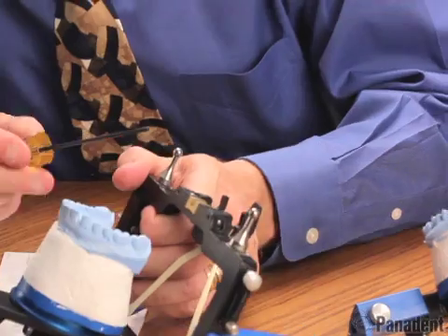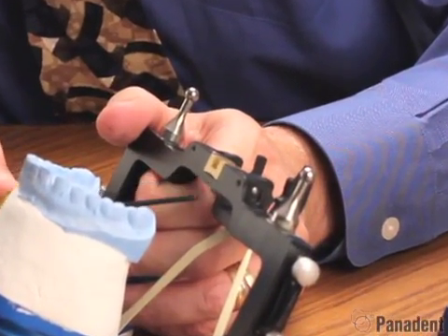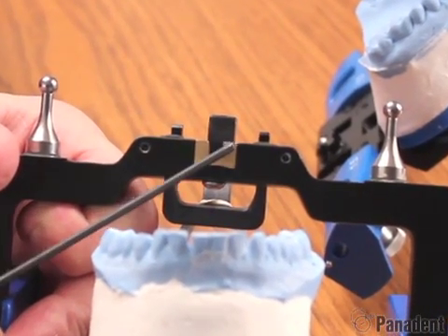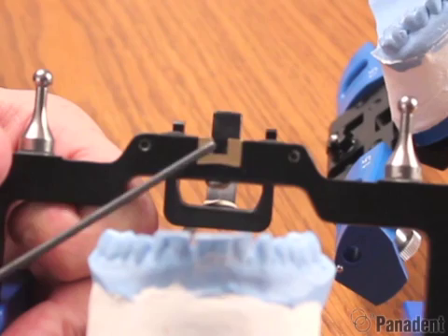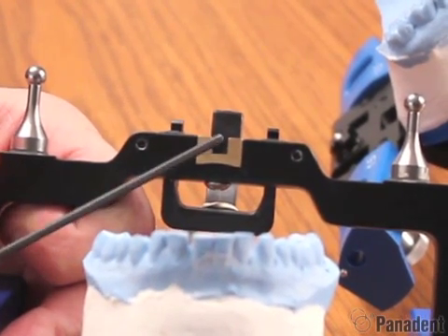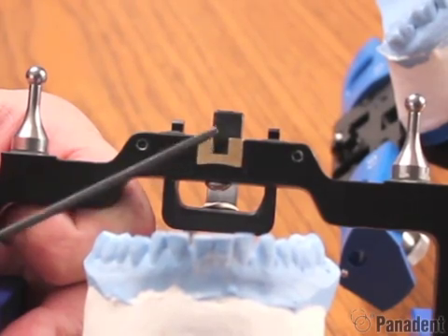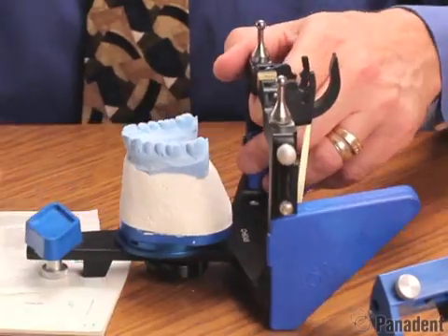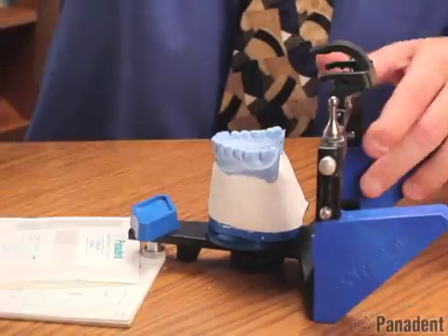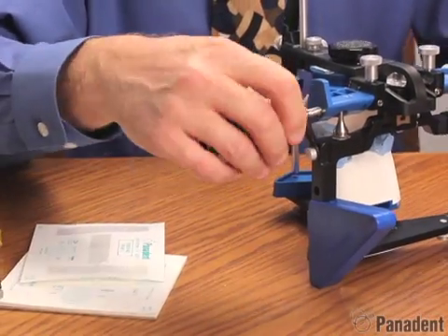If you notice, there's also a little half-moon effect on the bottom of the centric channel, which means if you tighten the screw down too tight it will pull the center down and actually squeeze the sides inward — so this centric channel is adjustable. If you over-tighten the button screw the centric pin will not slide through the channel well, so you may need to adjust that slightly. We'll go ahead and release the rubber band in the back to release the centric latch, and add our upper frame back to the articulator and add back our Dynalink pins.